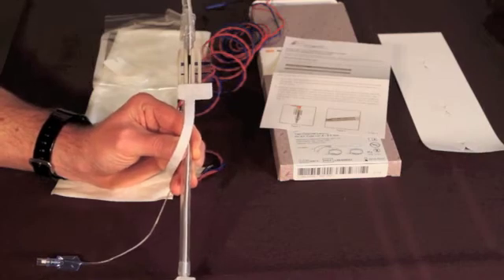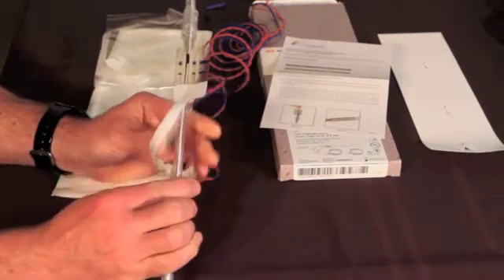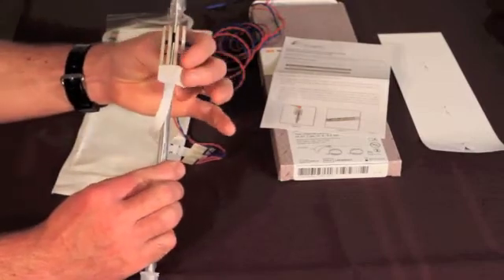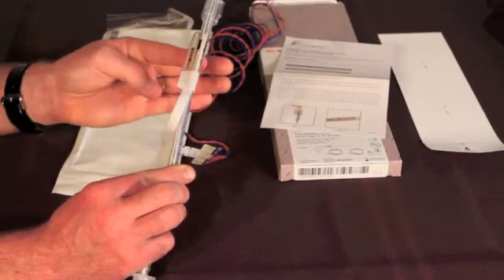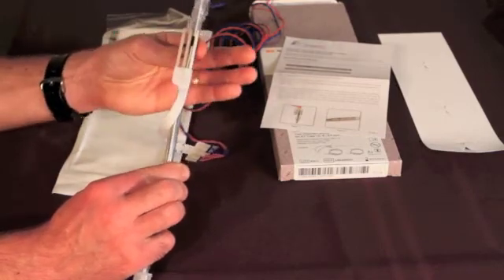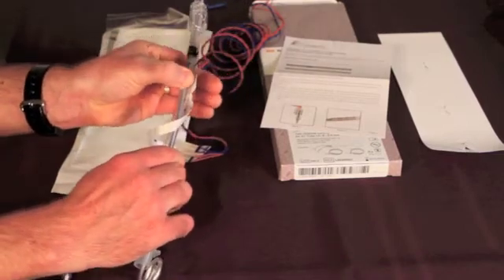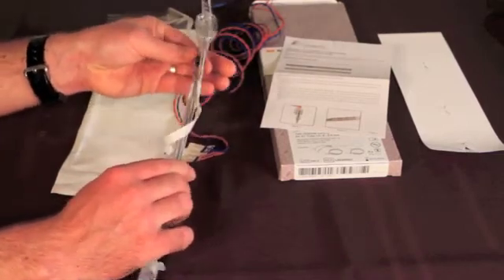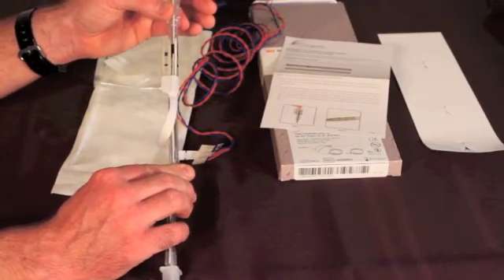My next step is to take the larger side of the electrode and wrap it all the way around the tube, starting in the middle and going all the way around underneath, and then pressing out to the corners as you can see here, out to the edges. Now half of the electrode recording surface is on the tube.